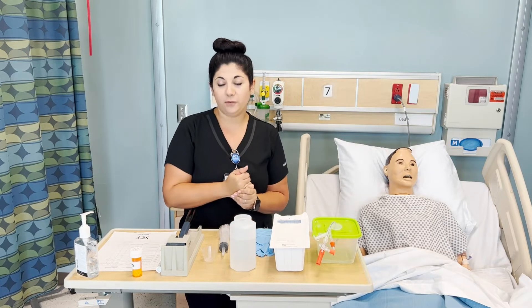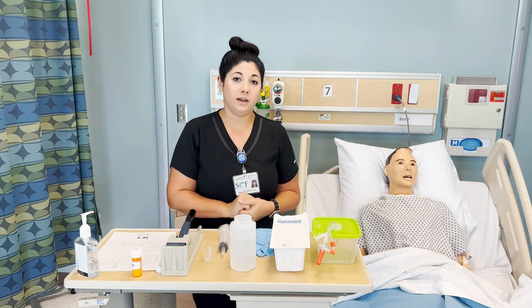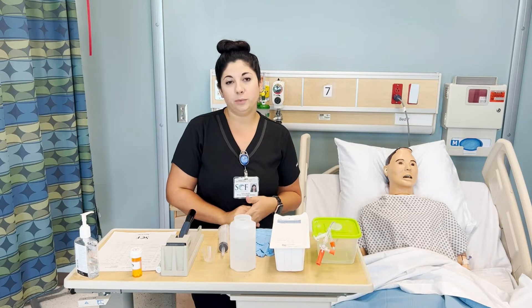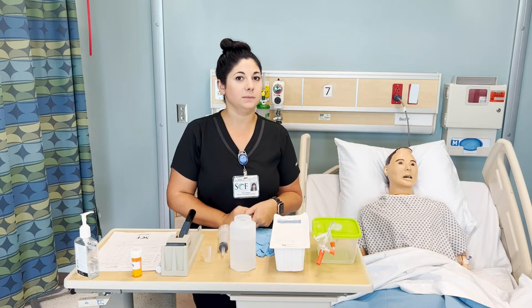If we have liquid medication available, that is preferable. If not, make sure that you verify that the medication can be crushed. You shouldn't be crushing anything that's in a capsule or anything that is an extended release medication.